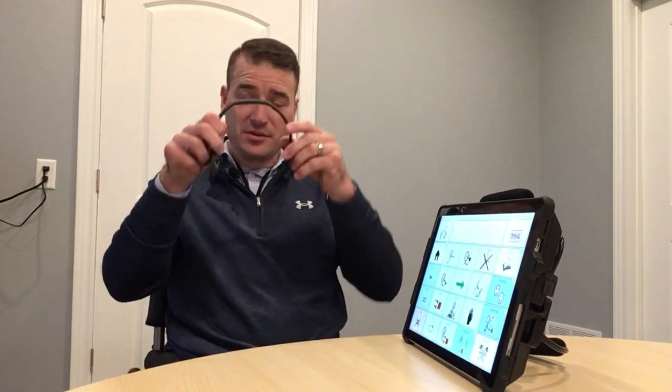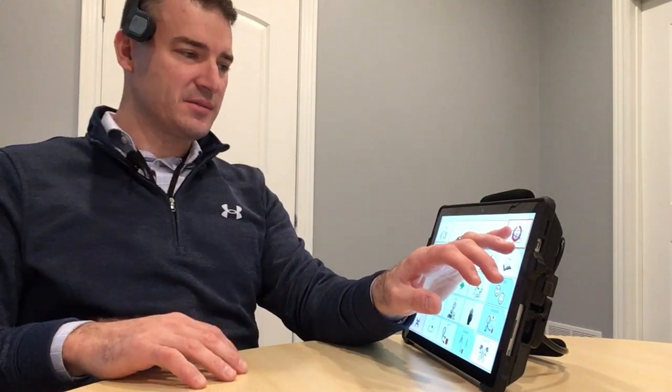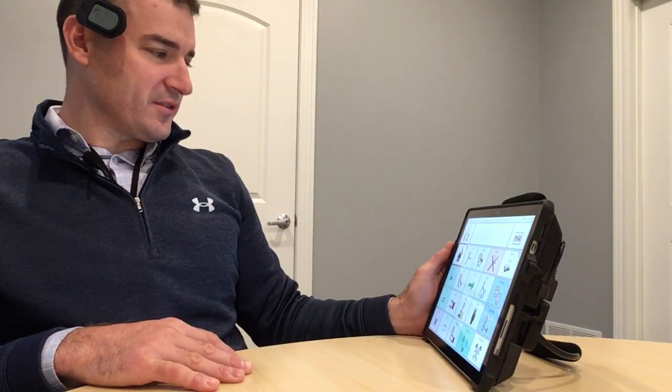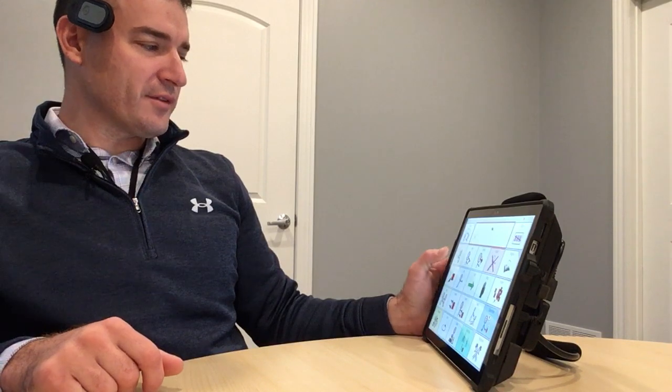This will be a little difficult to demonstrate, but we'll do our best here. What I would do is wear this on my head like that. They have some other accessories that you can wear it like a neck band, and some people will wear it on a wrist, but this is the most common. And what I can do is move the mouse cursor around — so for example, I'm going to first select the home, and I would hold my mouse pointer over I.